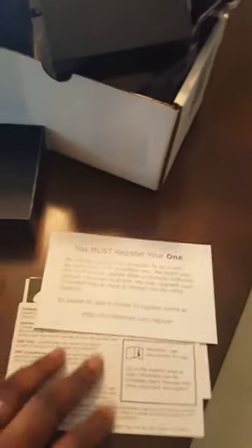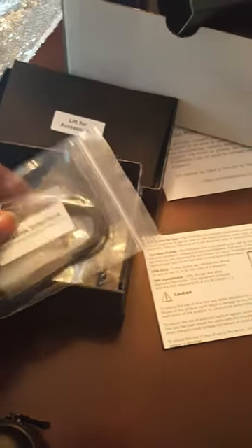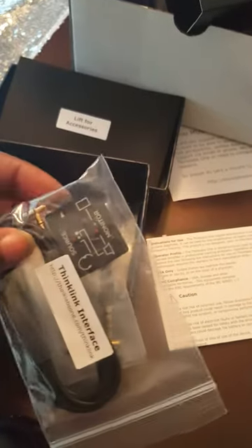Anyway, I think this is just instructions. I will read through that later. I'll post videos and stuff when I actually start using this. I can't really say what I'm using it for now, but stay tuned because it's going to be really, really cool.